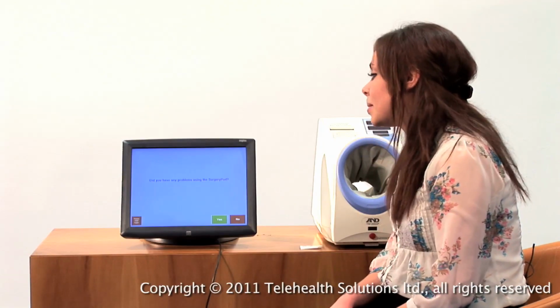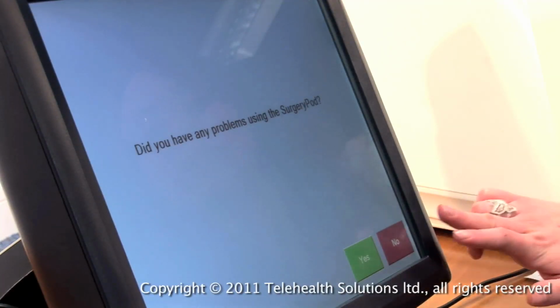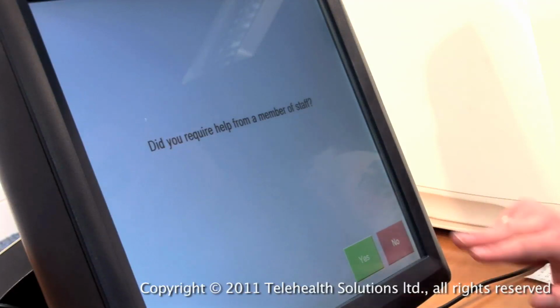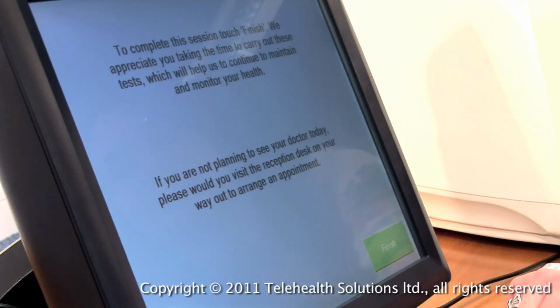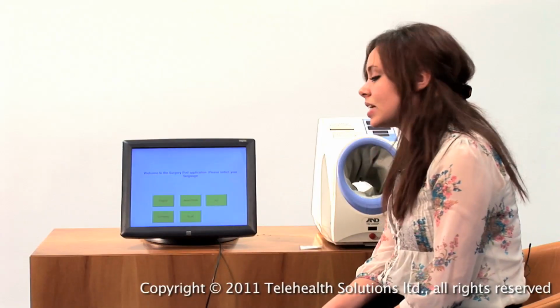So then what comes up is an actual usability questionnaire. So firstly, whether you had any problems using the pod, whether you found the instructions clear, and whether you required any help from a member of staff. Once you've finished, the very last screen comes up saying that if you press finish, the test will be complete. So when you do that, it returns to the home screen.